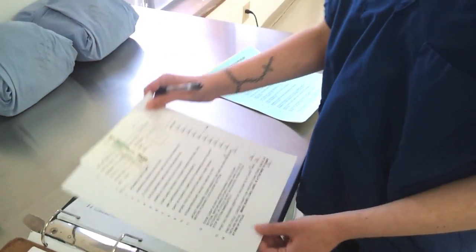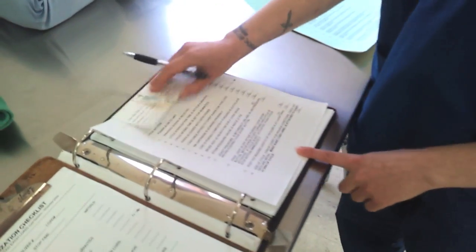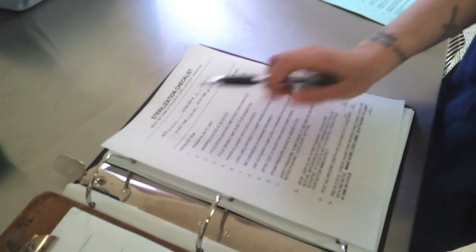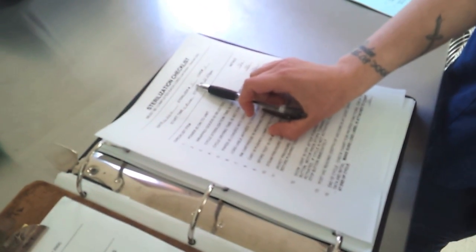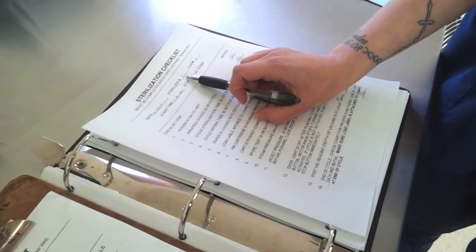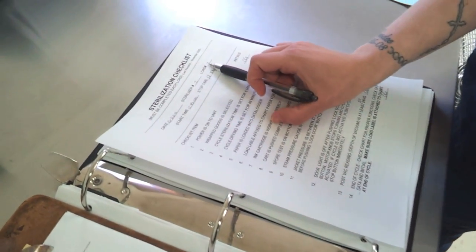This is the load paper, and write the date, the sterilizer number, and then the load number.